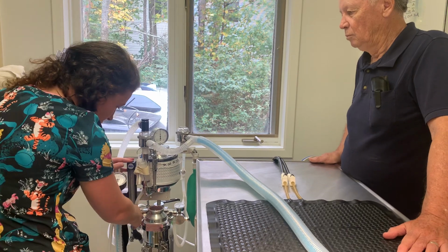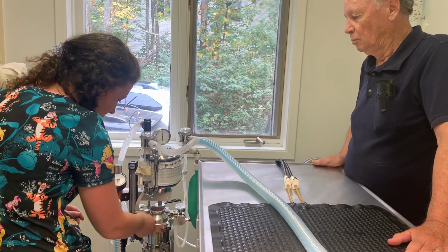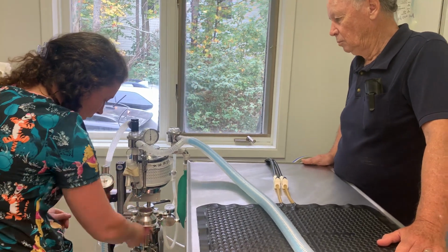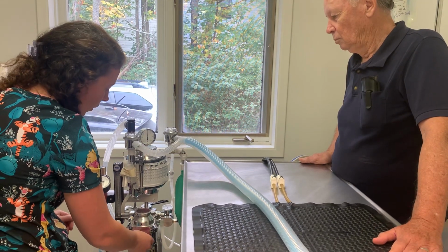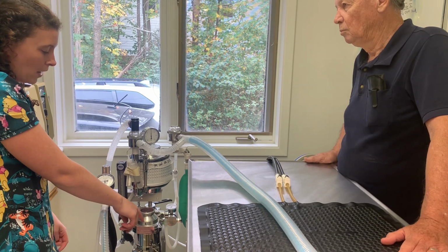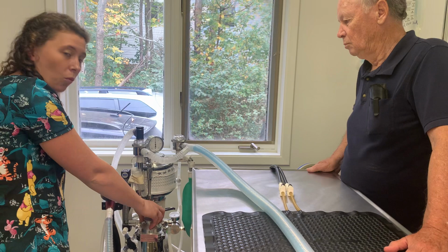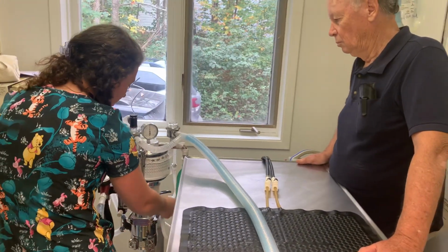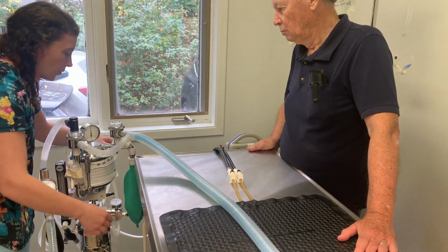Then going into our vaporizer inlet, we go through here and then into the vaporizer. So the oxygen is going to flow in here in the vaporizer inlet, into the vaporizer, and it's going to pick up isoflurane. And we've got a valve here, and it's going to be able to determine how much of the isoflurane we're able to give the patient depending on where we set this valve. Then it's going to come out of the vaporizer, out the vaporizer outlet, back up and around here.